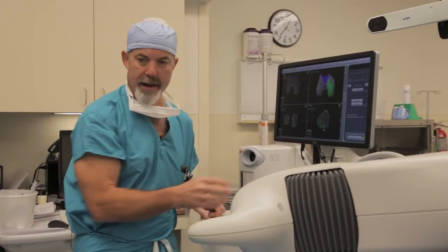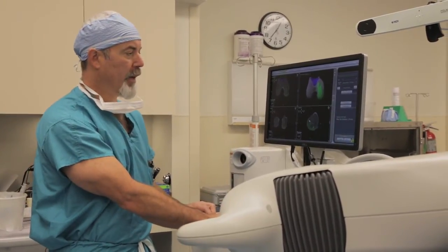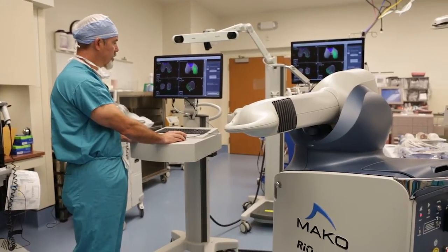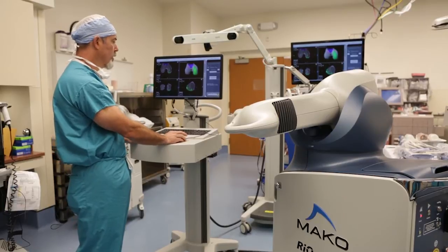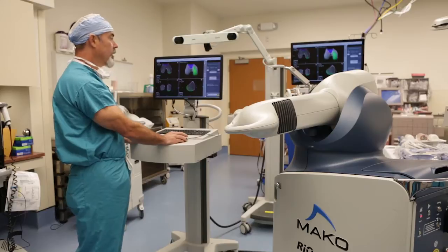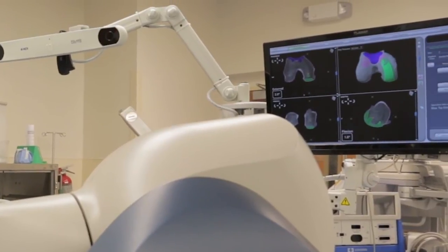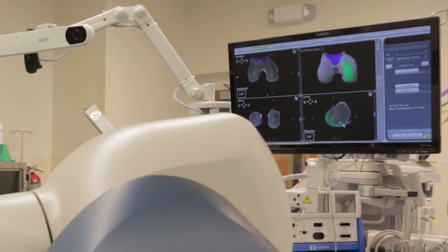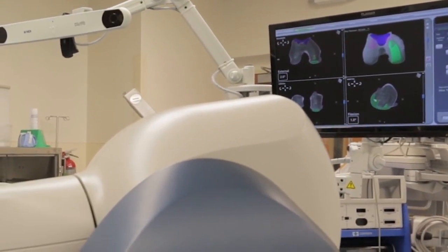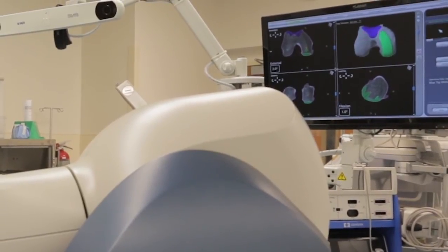The first thing I do in the side view panel is pick a radius of curvature of the implant that I think fits the patient's native radius of curvature on the end of their thigh bone. The purplish line intersects the implant well, so I think size 3 on the femur is right. Checking a size 2 on the femur — it just looks too small. The radius of curvature is much smaller than the native radius, so I switch back to a size 3, which is clearly the right size.